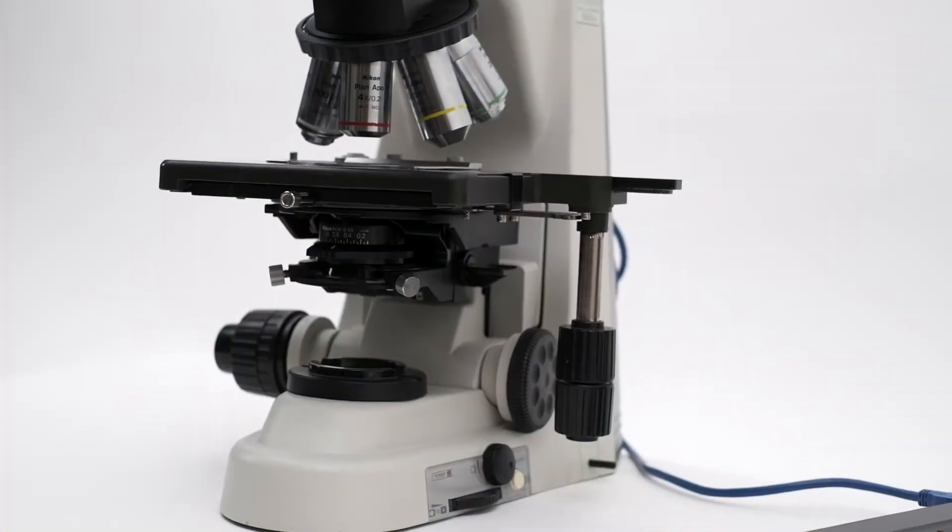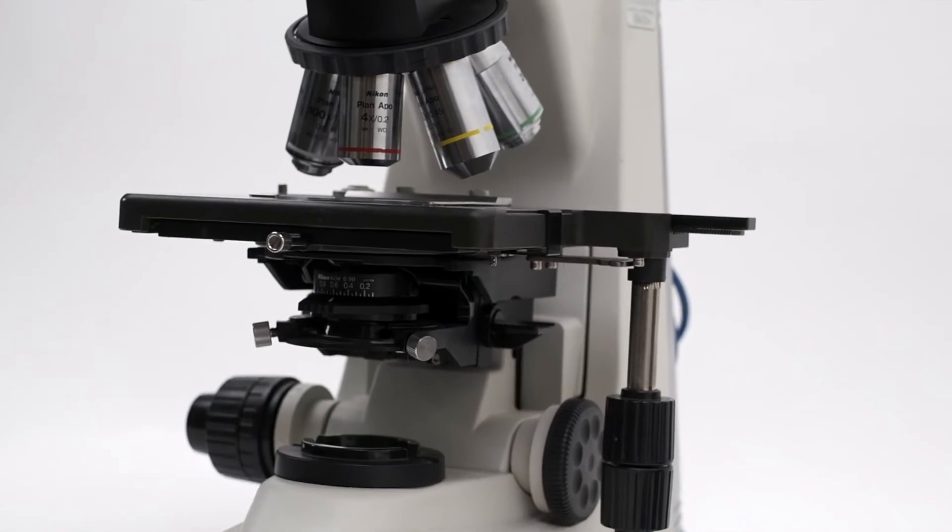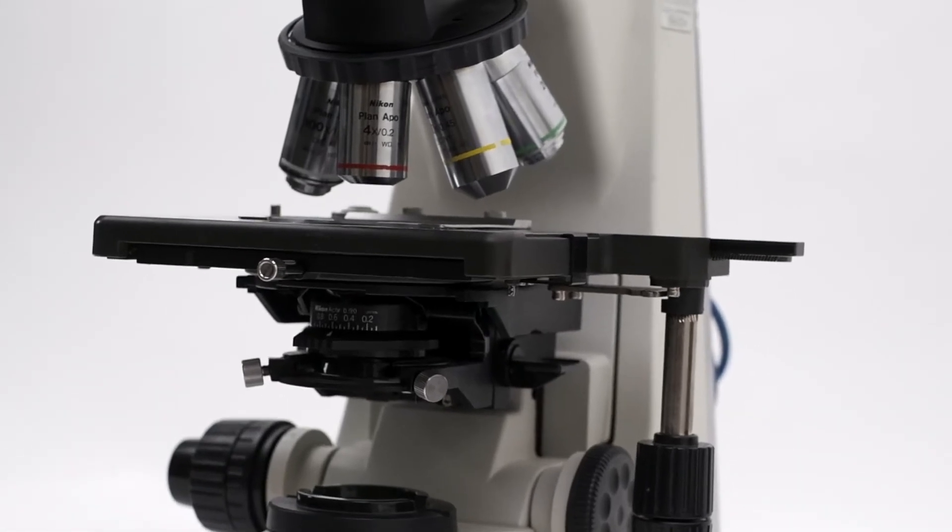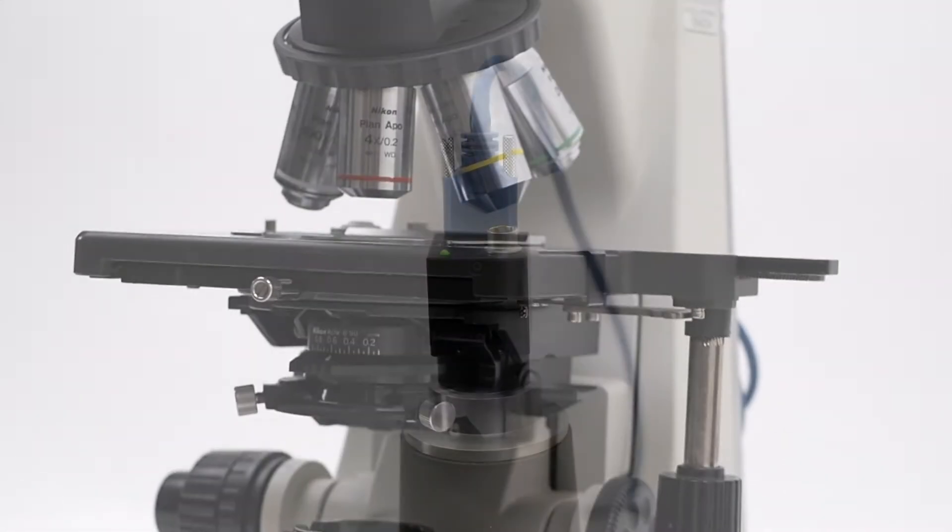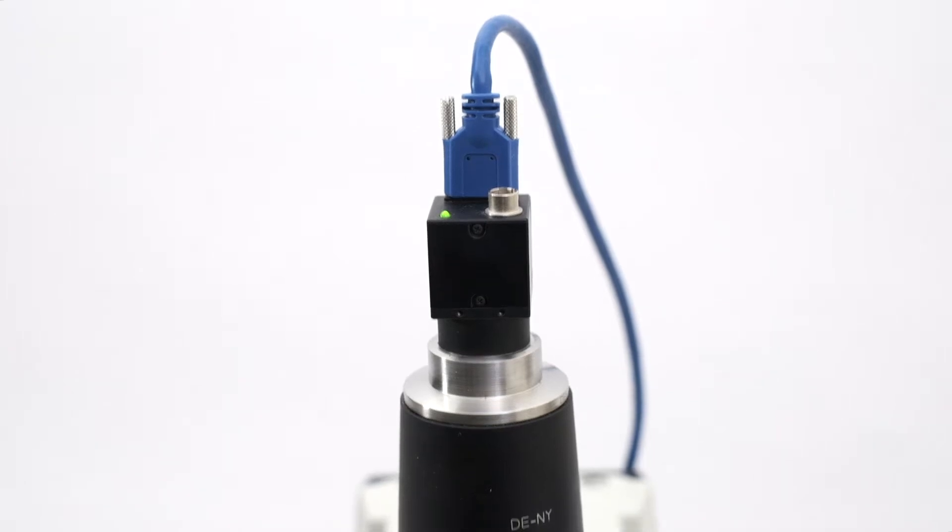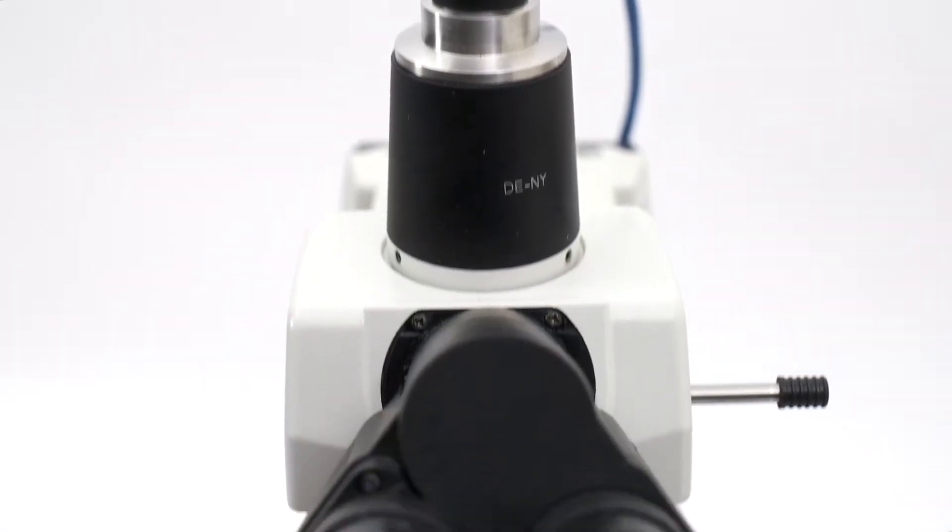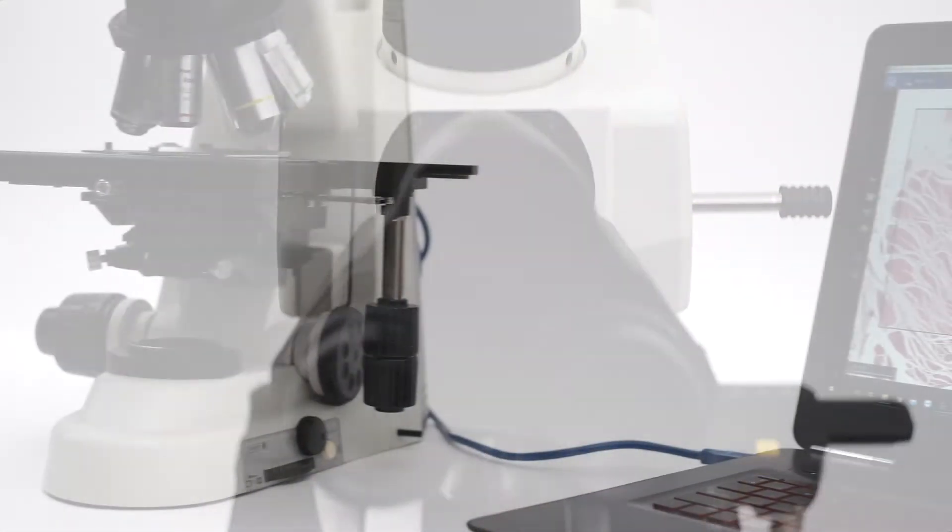Using all the features of their existing microscopes, a conventional digital camera is mounted to the microscope. The camera streams video to the lab's computer.